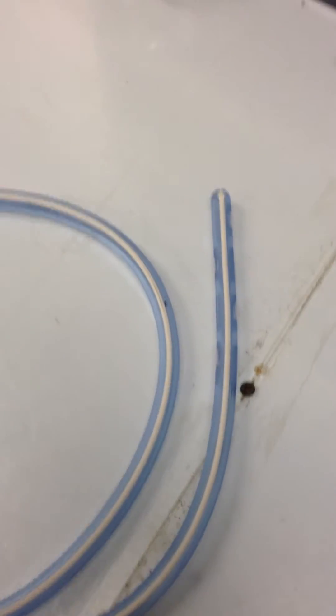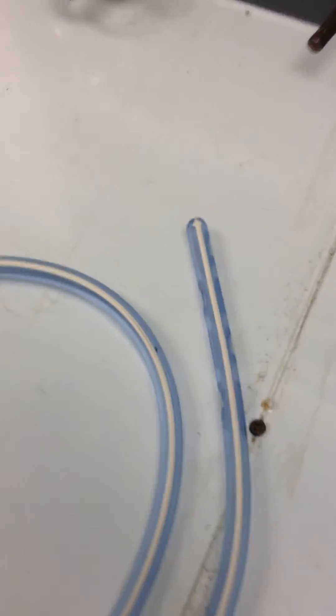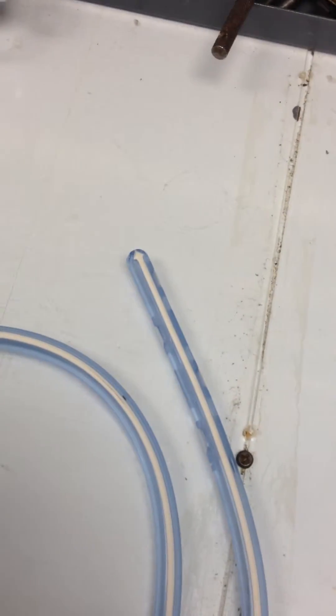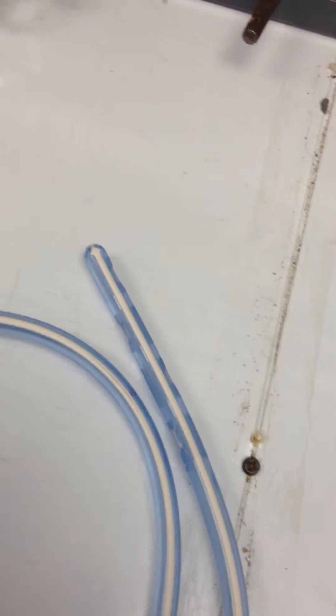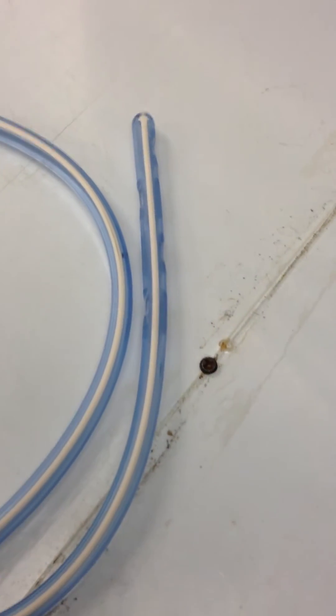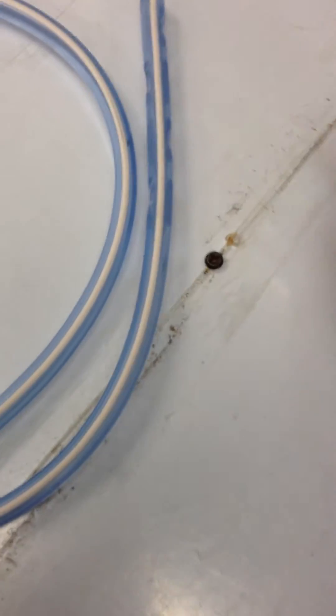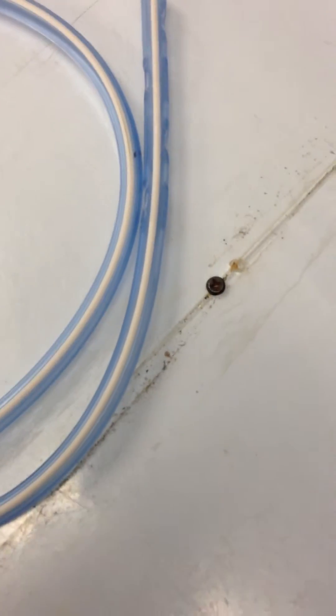Along that dimension, if you were to put this tube, hook this tube up to suction, I just want to demonstrate quickly here on the bench what happens to this. See that it collapses along its shorter dimension. You can actually see the tube thins out as it's on suction.